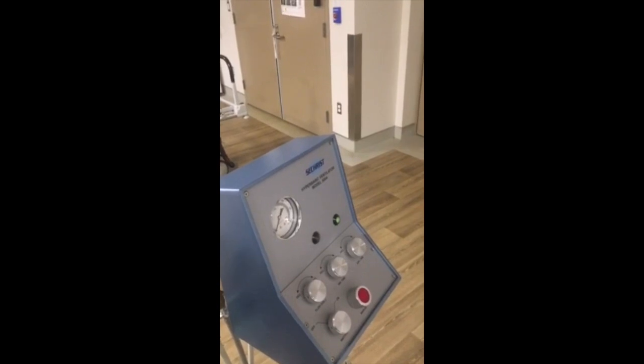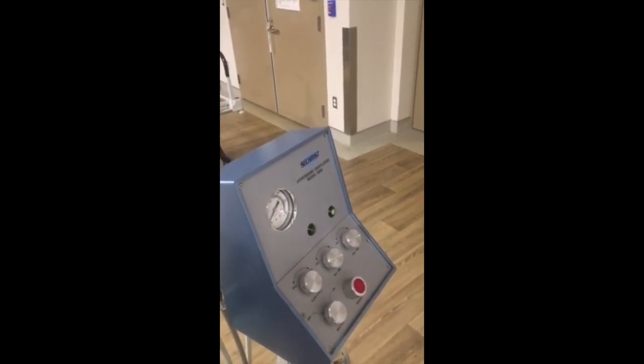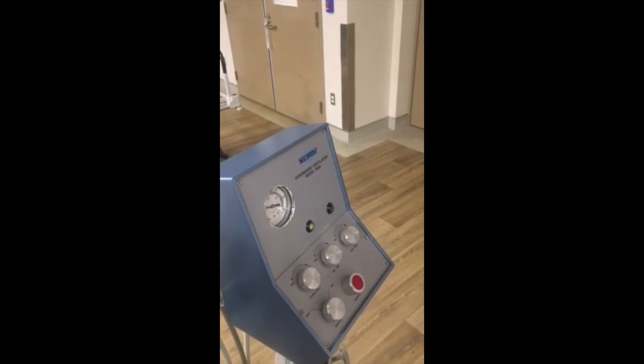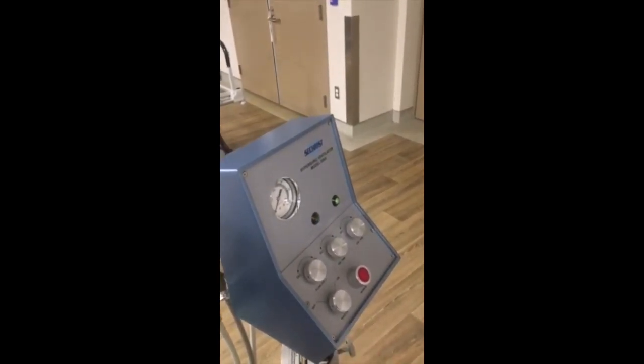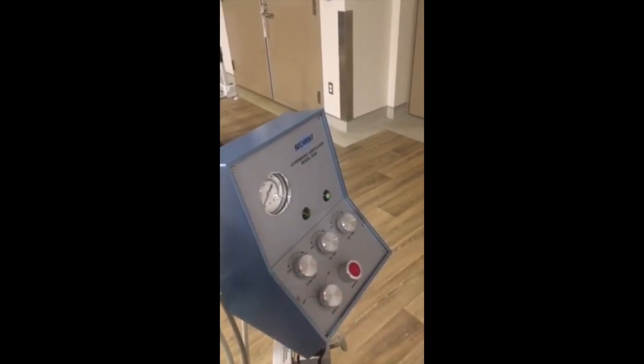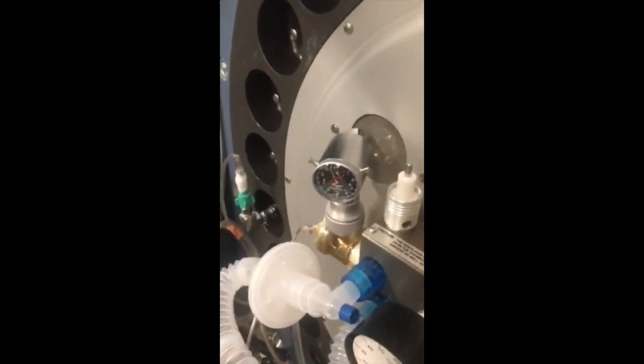We also played with the expiratory time to get that ratio of 1 second inspiratory, 2 second expiratory that you can hear right now. And then to get the volume that we needed, since we've made those adjustments, we played with the flow button, okay? And now we're getting exactly 10 liters a minute on our Wright's.